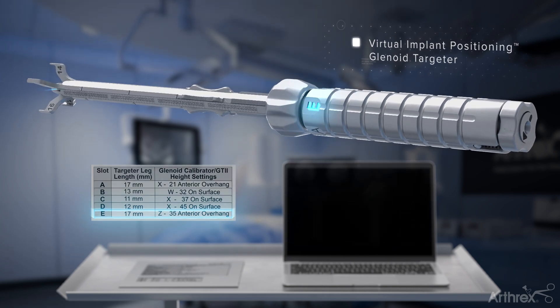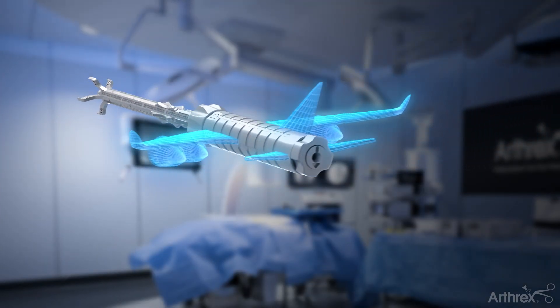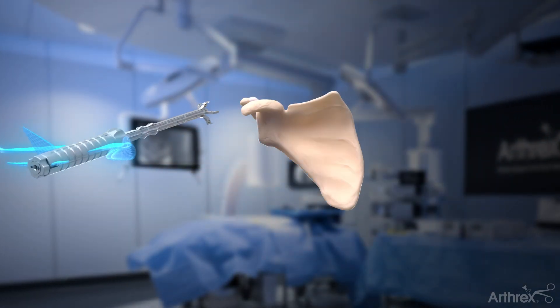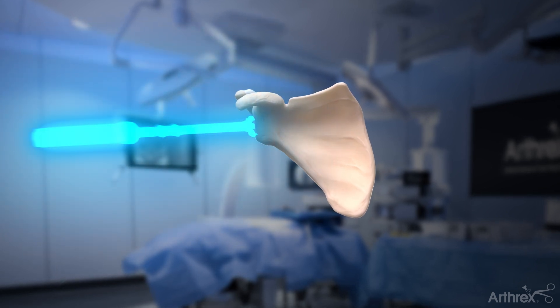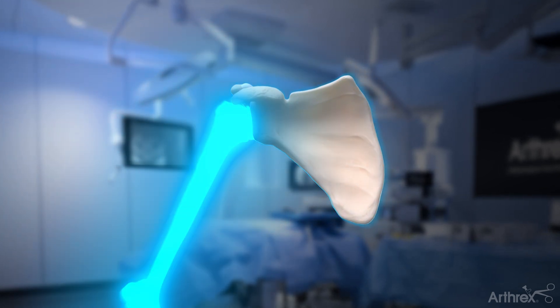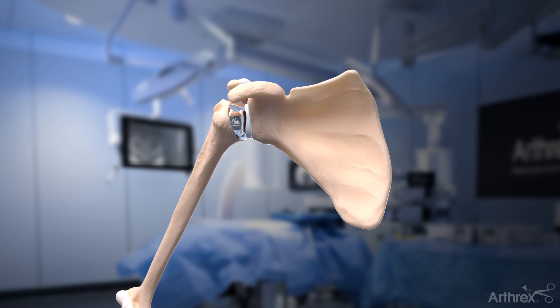Similar to a pilot relying on an accurate flight plan for a smooth and successful journey, your surgeon can depend on the plan to help give you the best chance for pain relief and get you back to the activities you love.